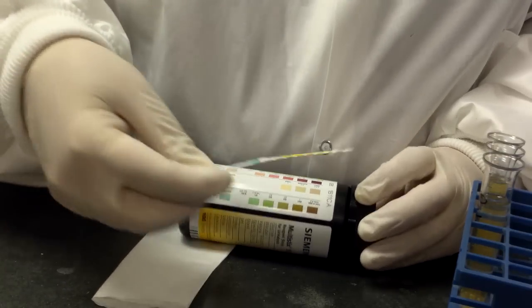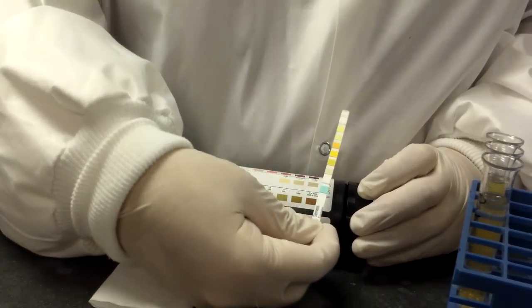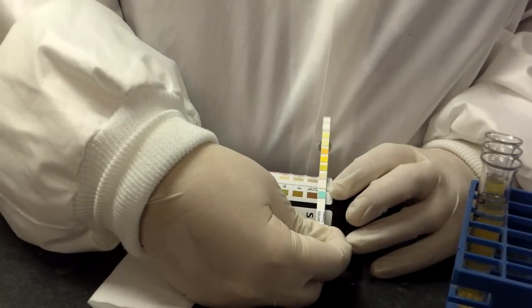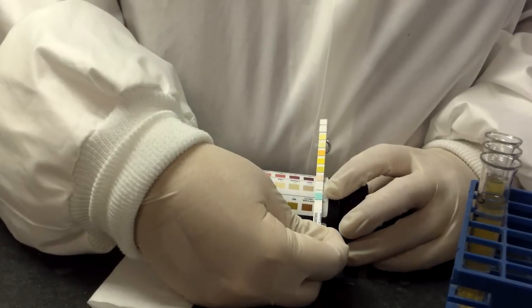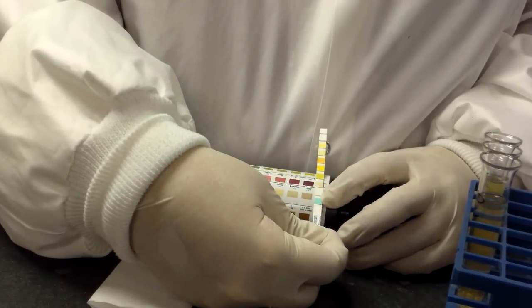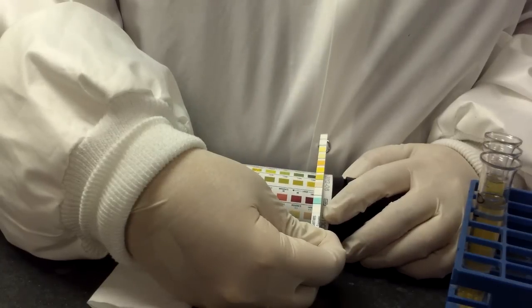So after you dip it, you're going to wipe it off. Then you're going to make sure you hold it by the handle end and you want to make sure you're lined up with the appropriate scale before you read it.